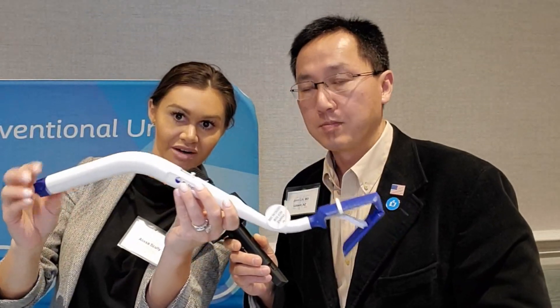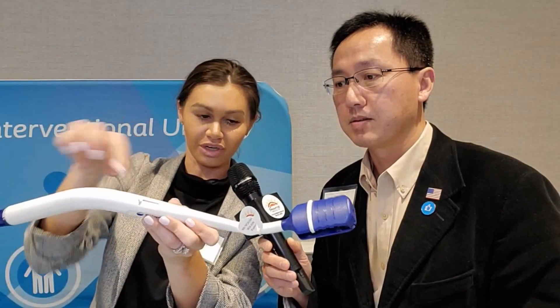The nice thing is we have this kickback door that can be opened, and once it's opened, it will stay open. We open it by twisting the knob here. You can look at the window, and it shows you how far open it is — once it's all blue, we're all the way open. If you have to do a large dissection and want to shut it, you can close it the same way and the window shows you the position.